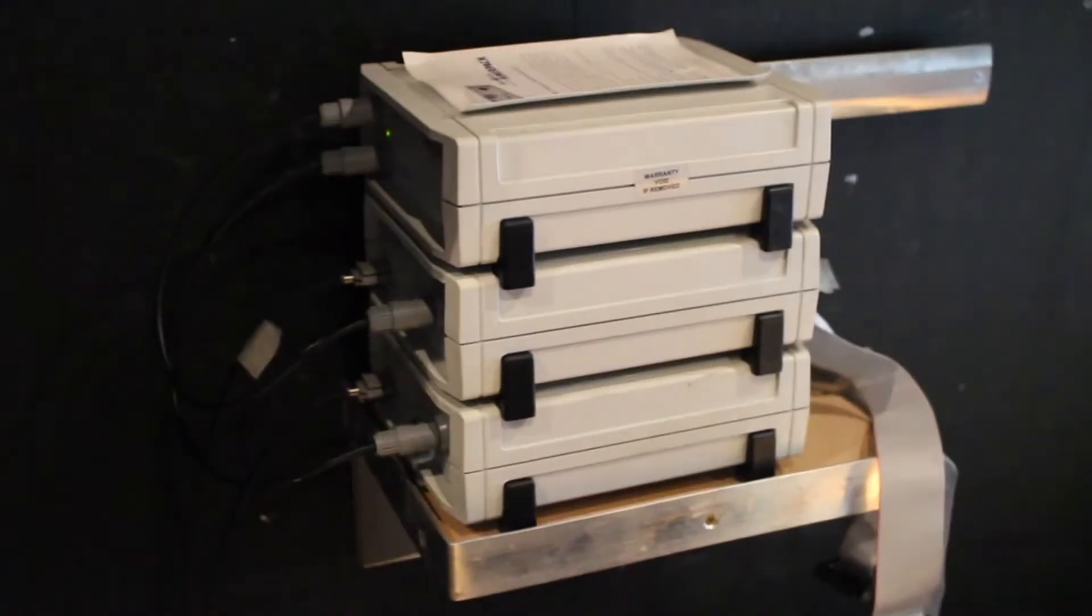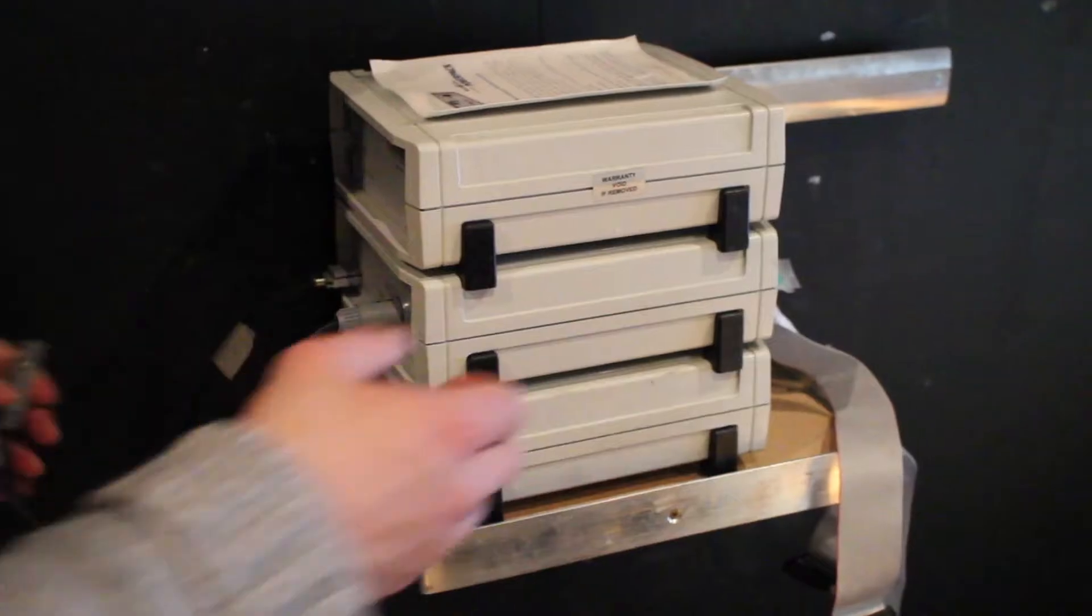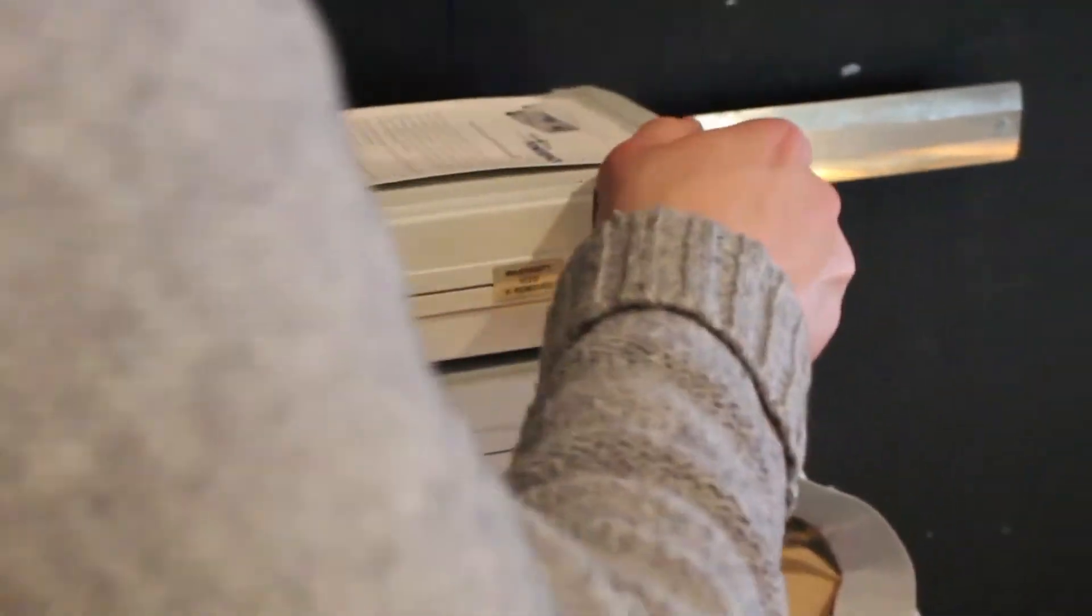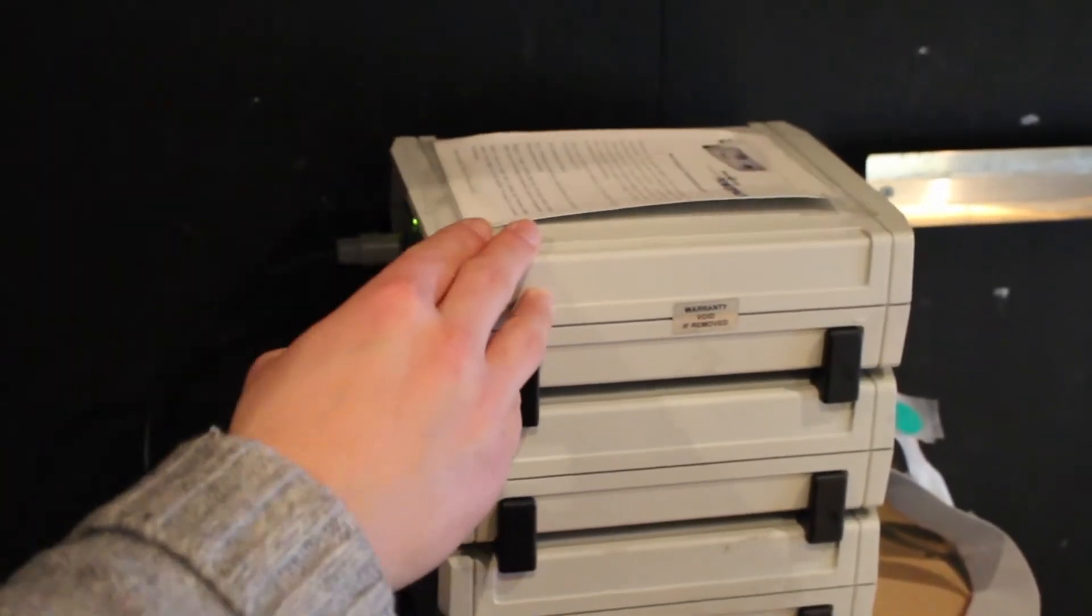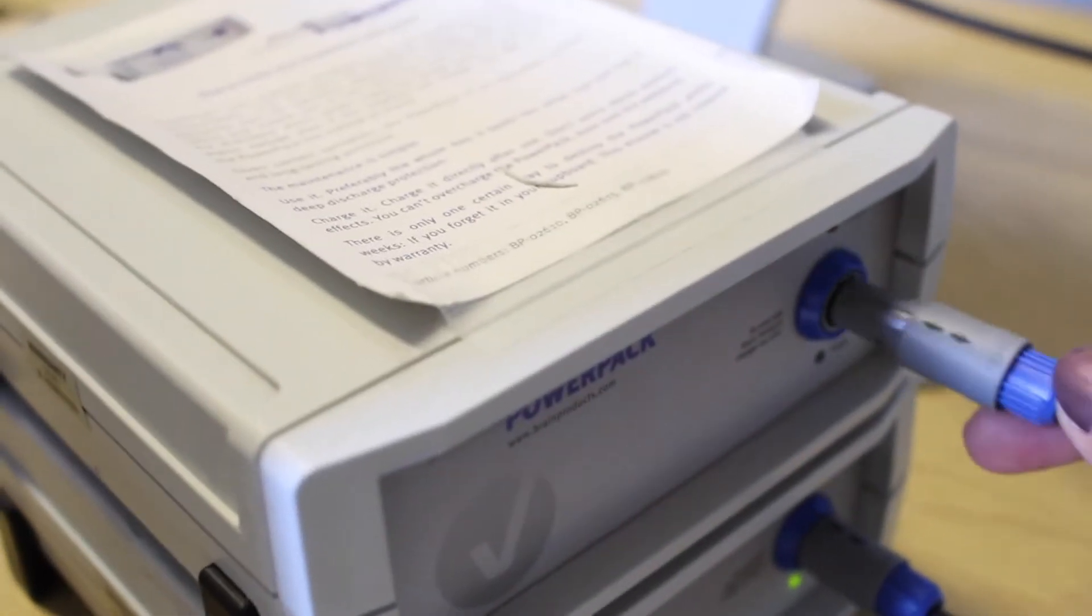If you have not already done so, change the amplifier battery over to a fully charged one and plug the one you've just removed back in to charge.